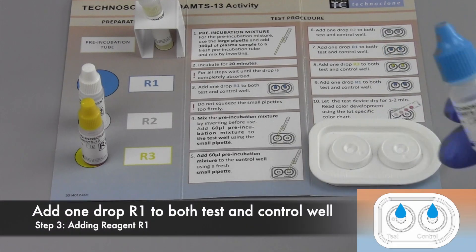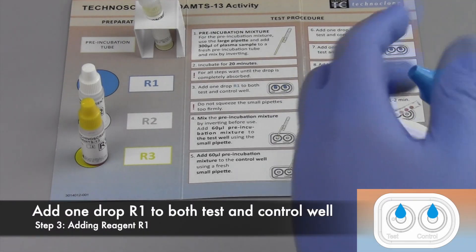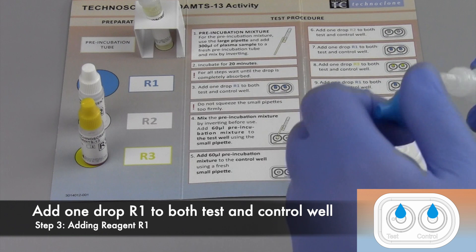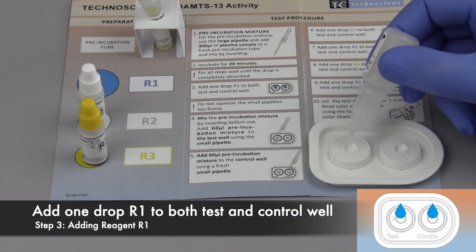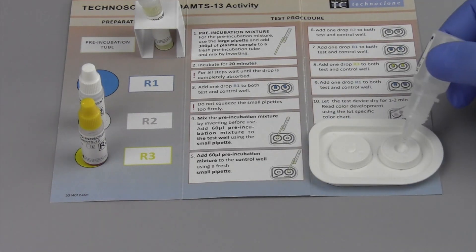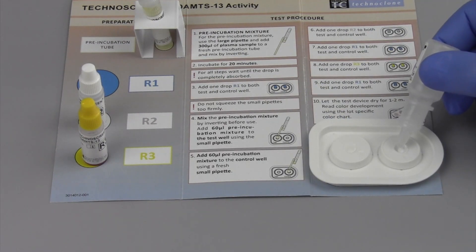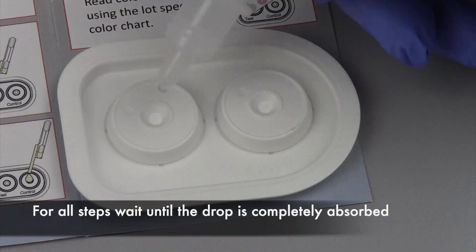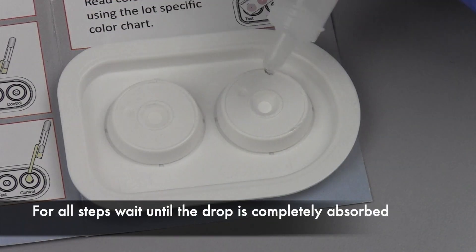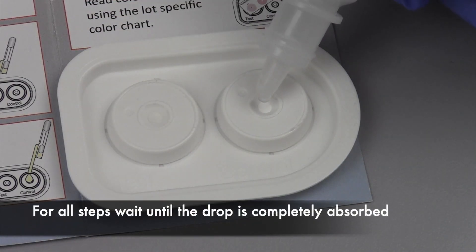As a following step, please add one drop of Reagent 1 to both test and control well. For all steps, wait until the drop is completely absorbed.